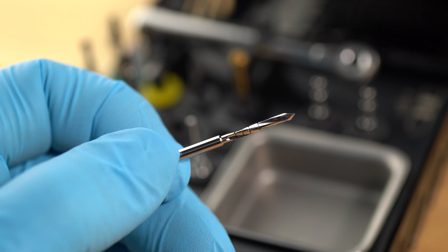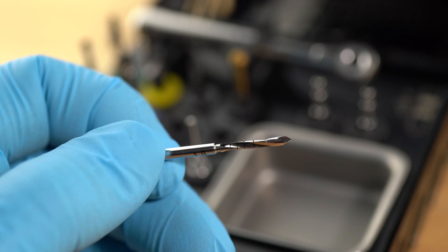The Lance Pilot drill — this is what it looks like. It's really standard and it's the most common way to start your preps, so you'll be using this most of the time.